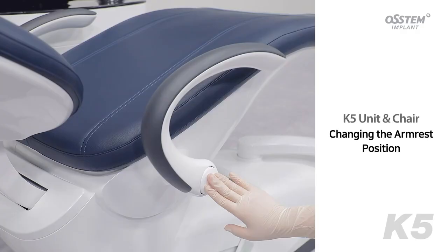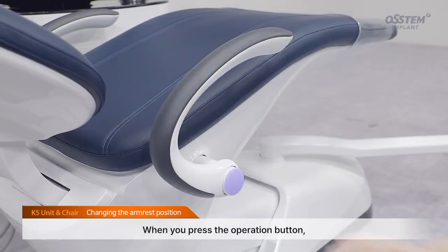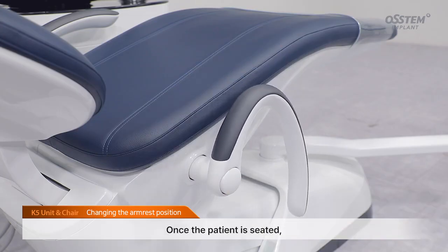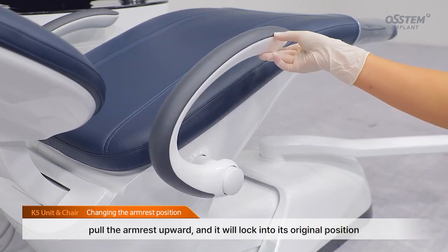Changing the armrest position. The armrest can be moved to make it easier for the patient to sit down and get up. When you press the operation button, the armrest automatically rotates downward. Once the patient is seated, pull the armrest upward, and it will lock into its original position.